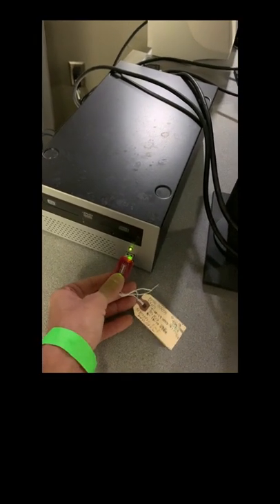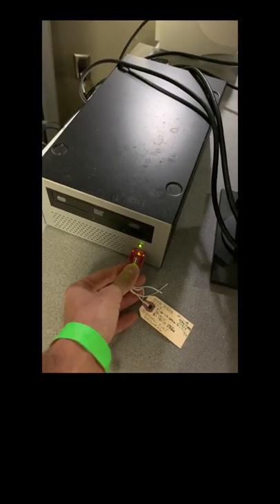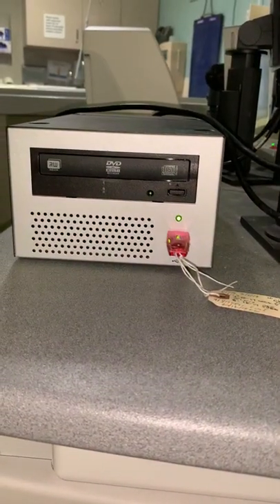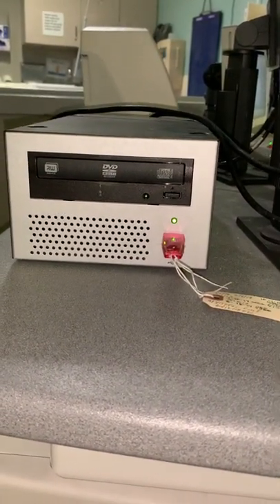Start by locating your system state USB and inserting it into the SCSI Tower USB port.